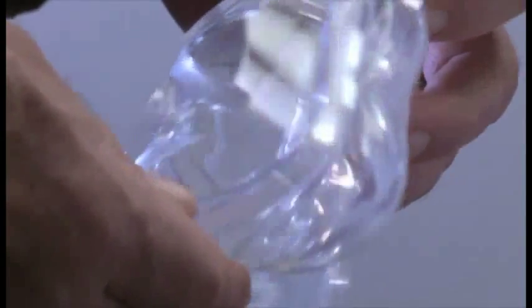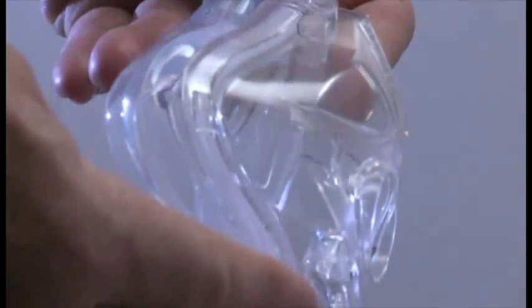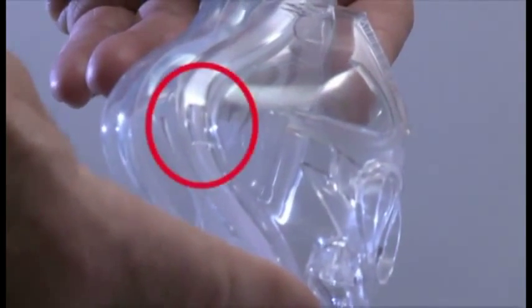There are alignment marks on the bottom corners of each side. These should line up with the indents on the frame like this.